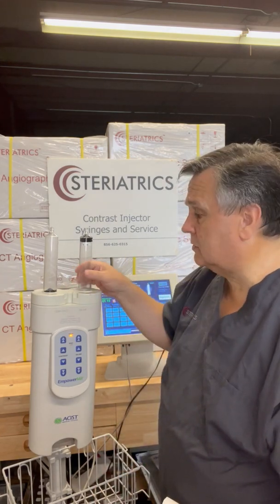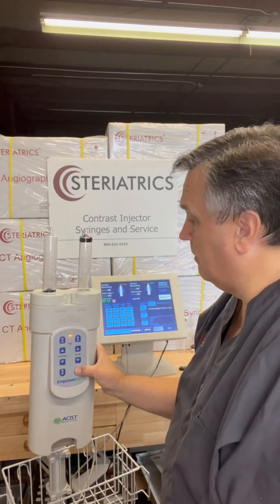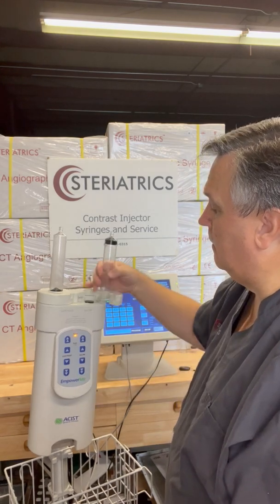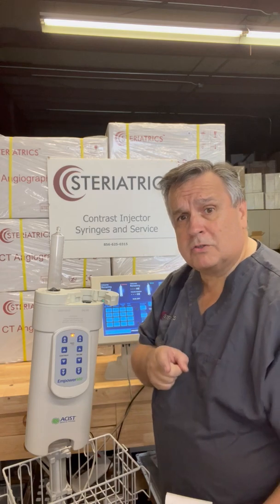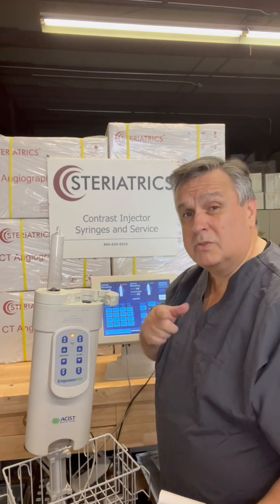That's how to successfully use the B302 syringes. I'm going to run the ram down a little more. Give them a try — B302s, nice injector. They work well and save you some money. Have a good day.